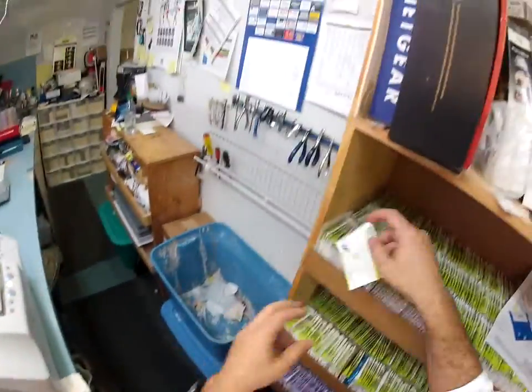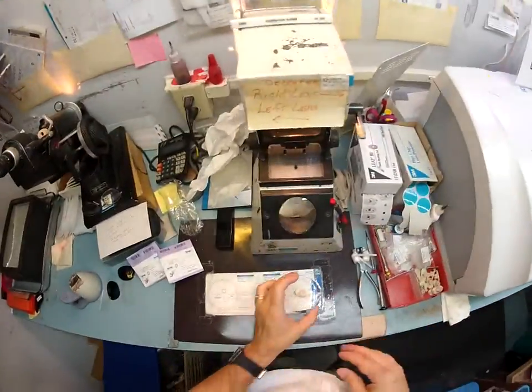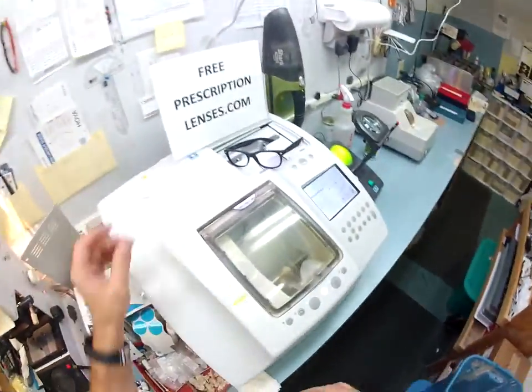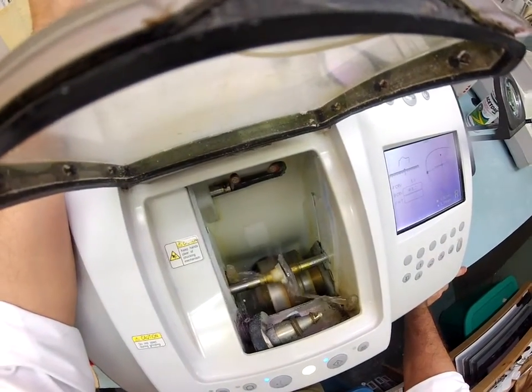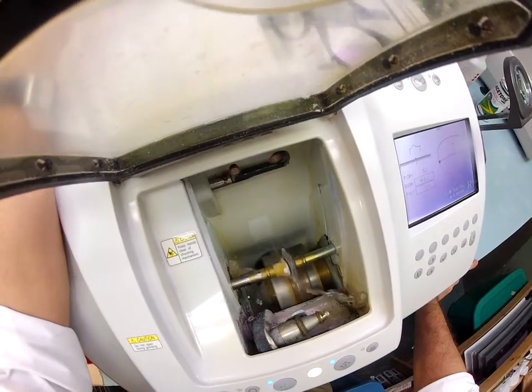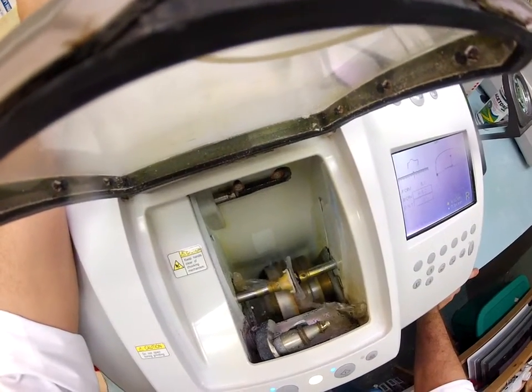The third feature that I like — the practical side — is that it comes with the best scratch coating of any lens, because the labs have to protect this very expensive anti-glare coating. Your right lens is almost done. It's actually putting the bevel onto the lens now. There's water running now to wash away the optical debris, but when it started, it was cutting dry. Polycarbonate cuts dry during the cutting cycle; the water only comes in at the very finish cycle to wash away any optical debris.